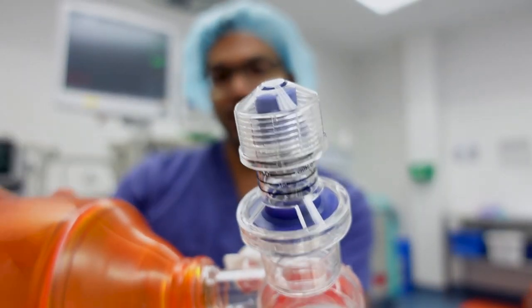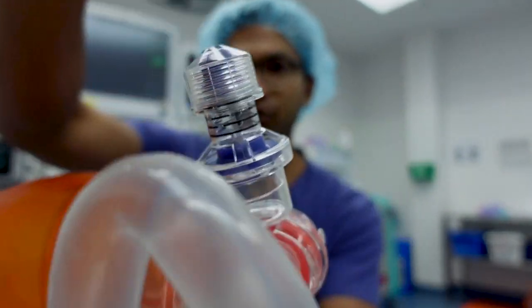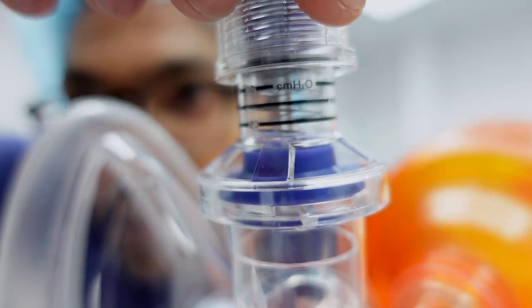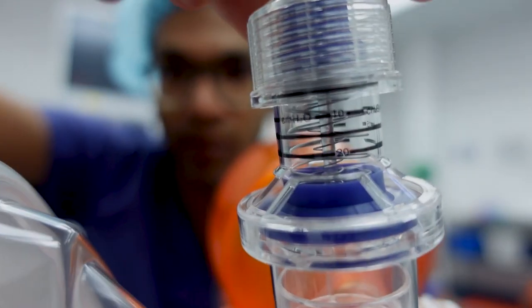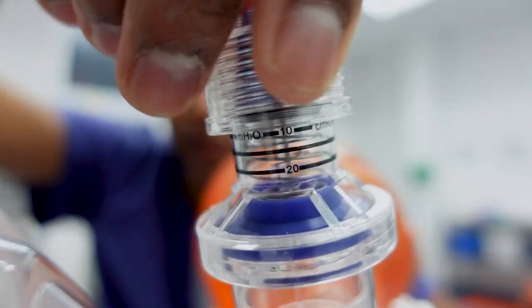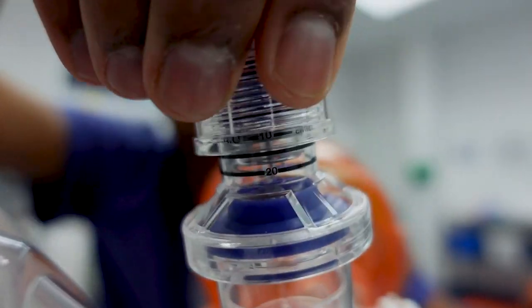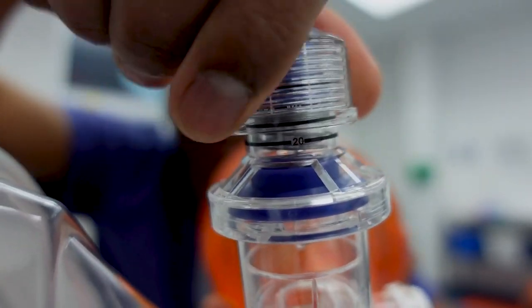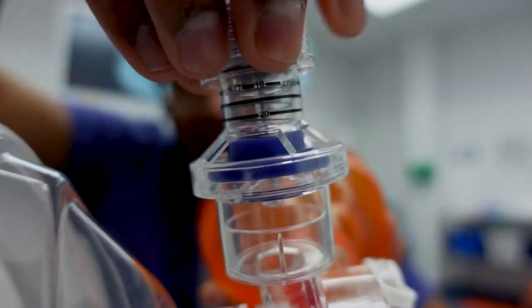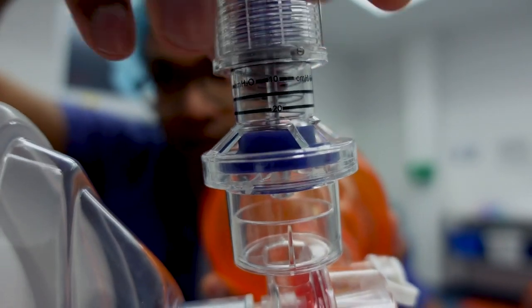The final piece of this puzzle is this little expiratory valve. This is such a great device because with this screwed valve you're able to apply different levels of PEEP. Screwing it on, I go from 5 of PEEP to 10, then 15, even up to 20 of PEEP — just by screwing this cap on. That gives you positive end expiratory pressure, which can be really great for sick lungs. If I want to take all the PEEP off, I simply unscrew it all the way.